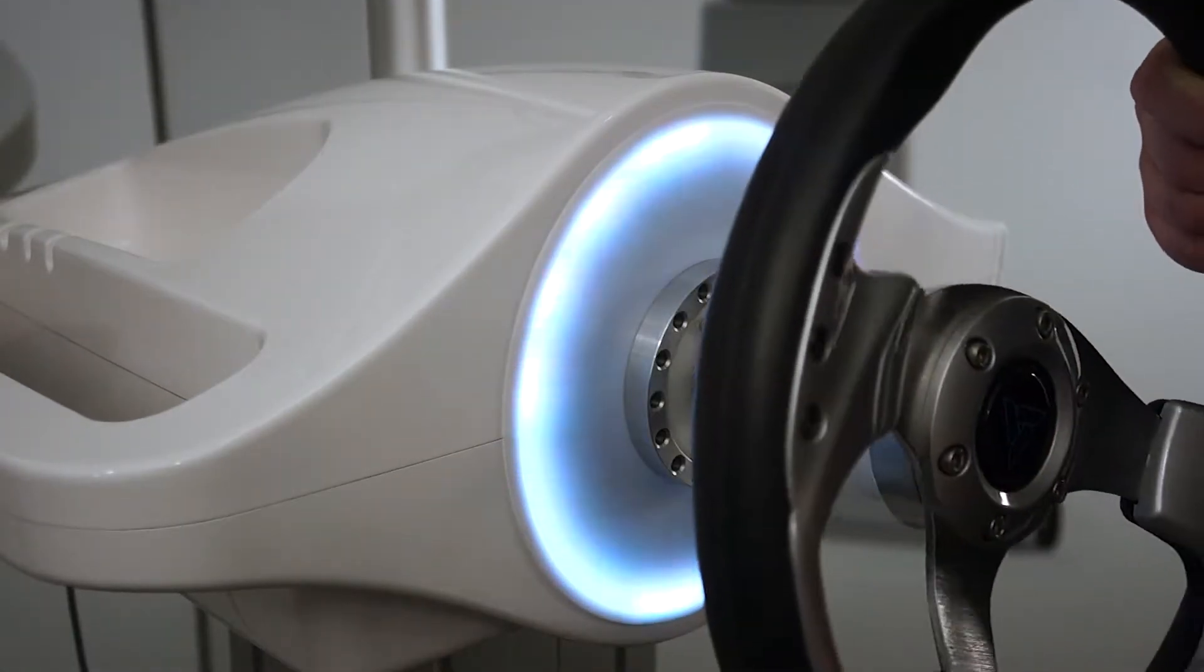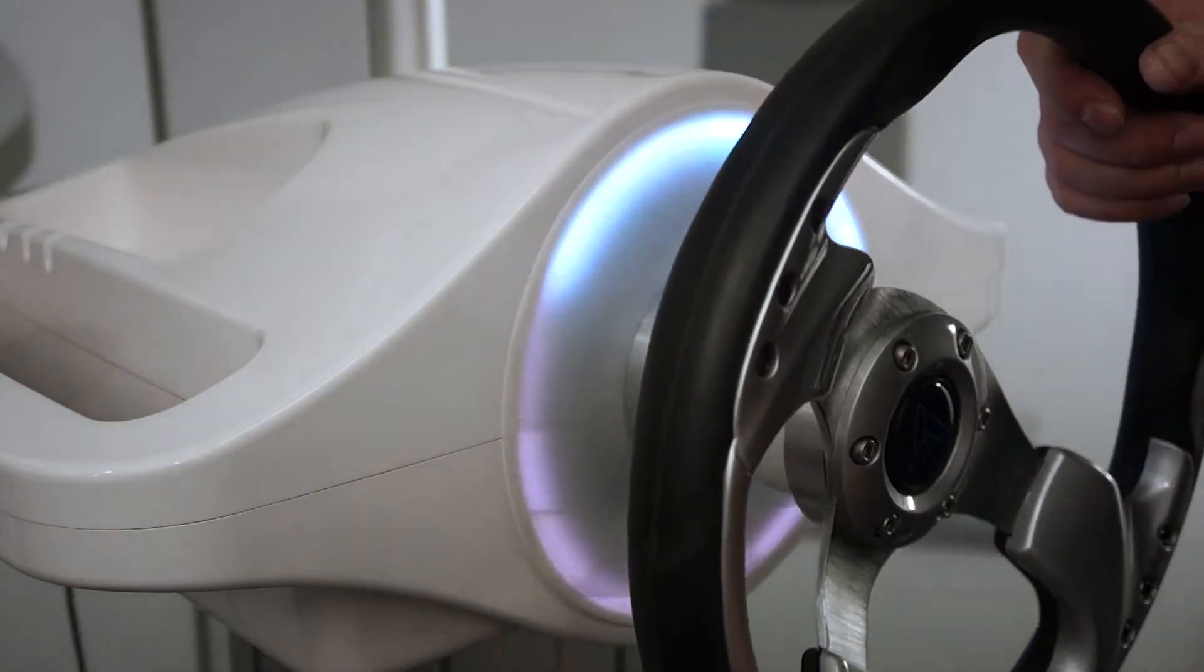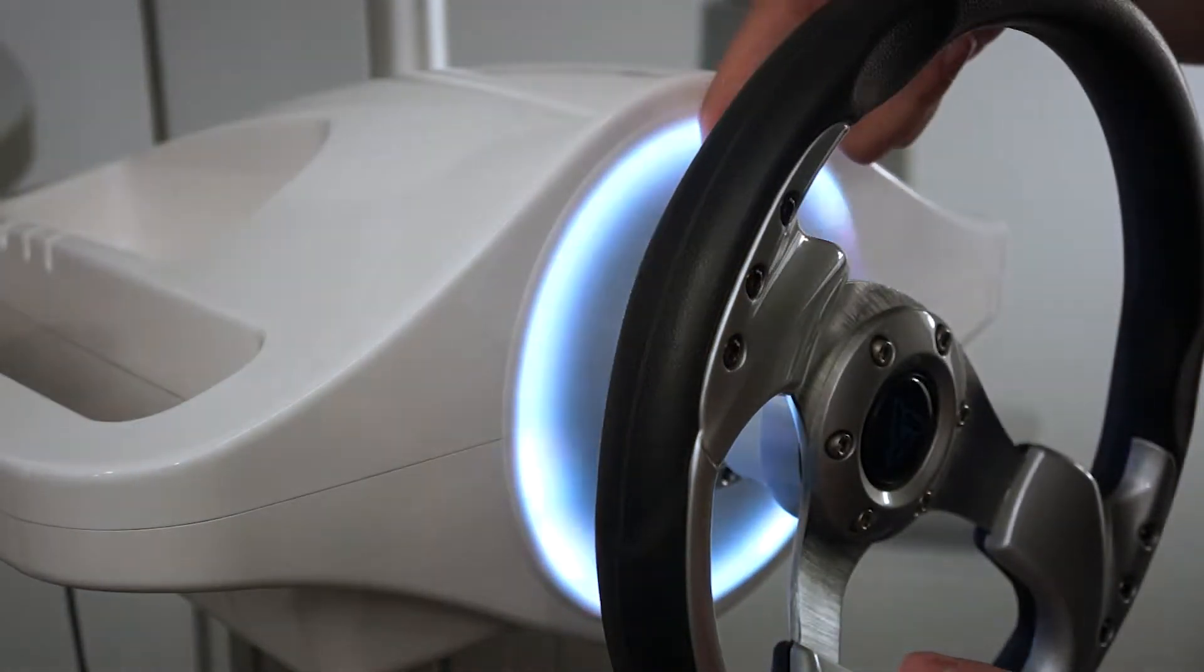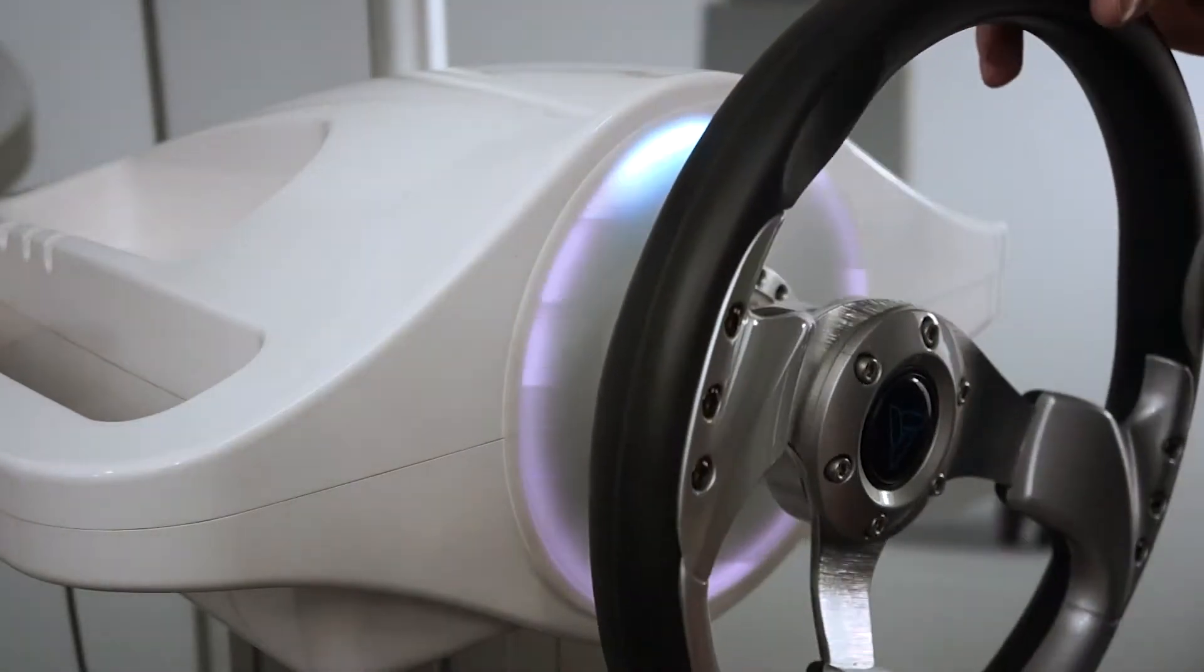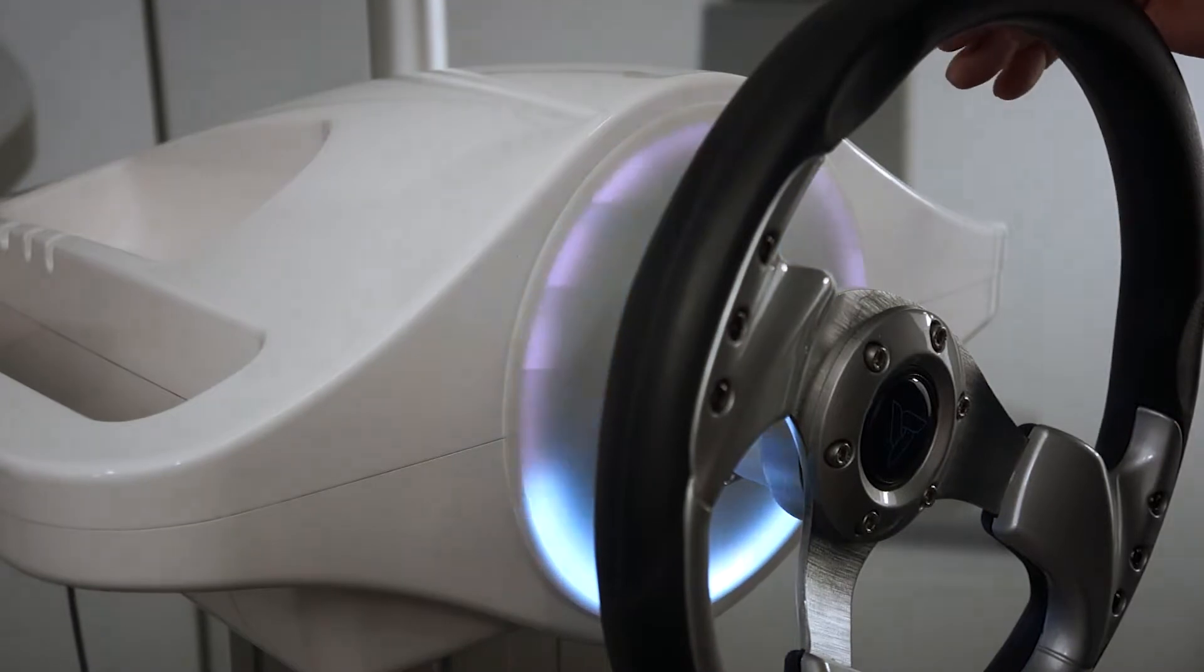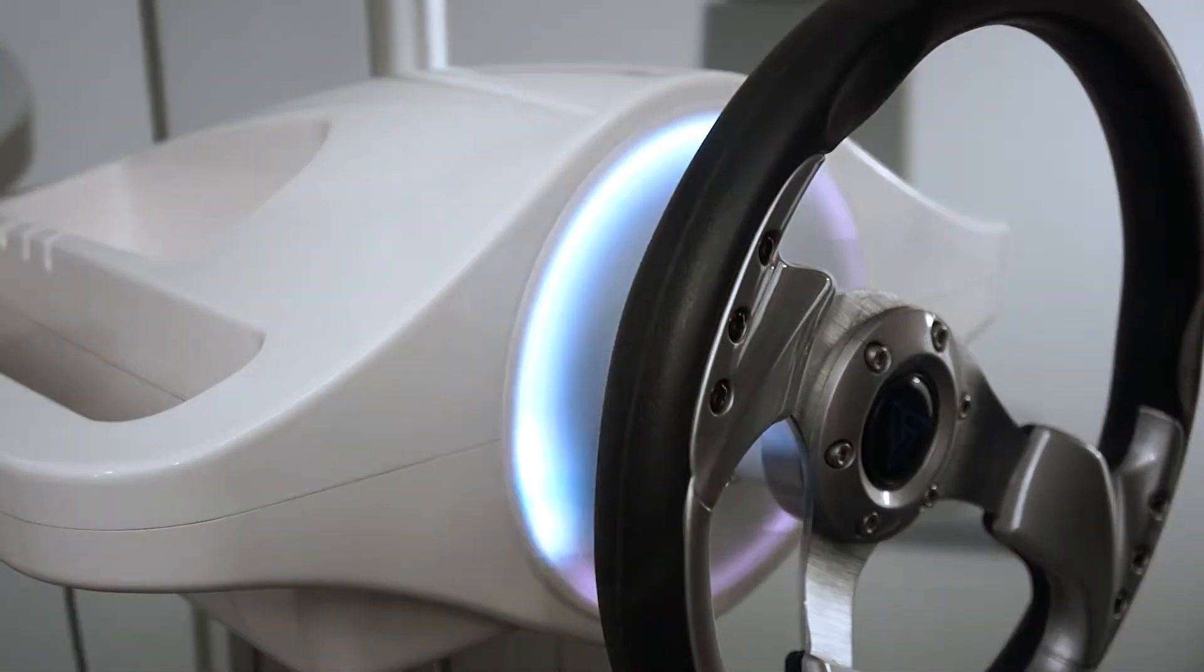The first step is aligning the extension with the shaft and putting it slightly in. It's not going to go all the way yet, and it'll allow rotation of the extension itself on the shaft, but the extension itself will not fall out of the shaft.